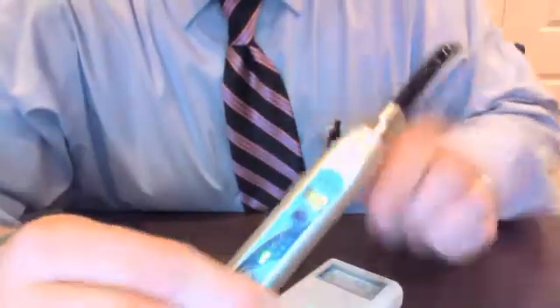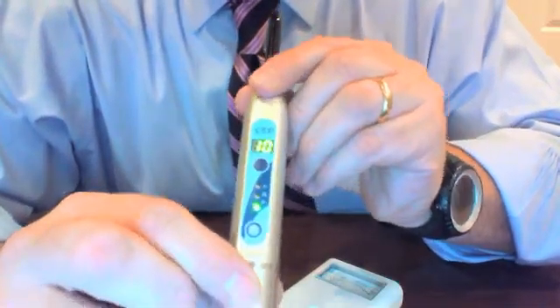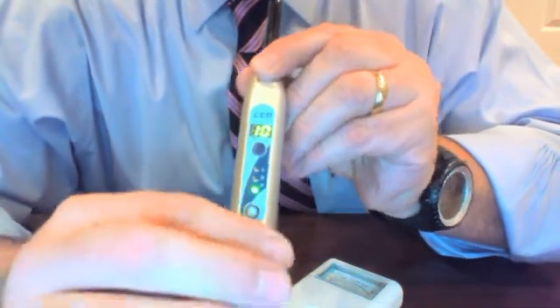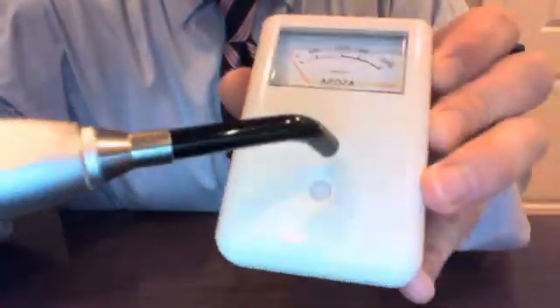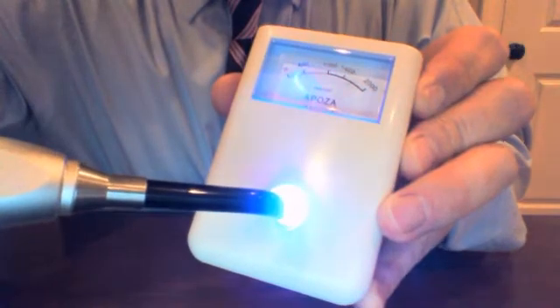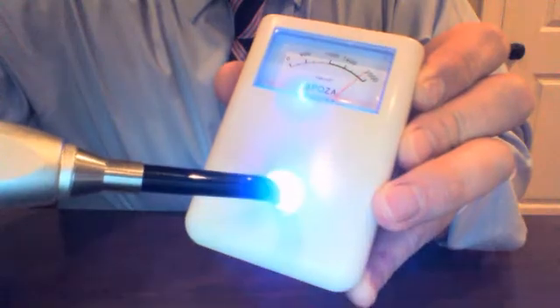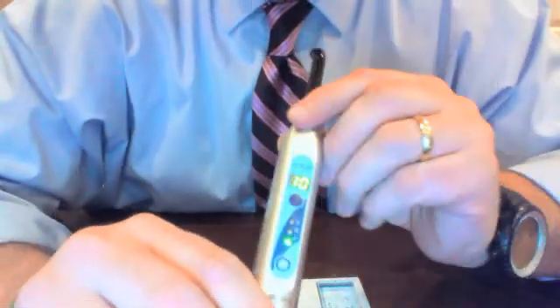The pulsated mode is available in three different intervals: 10, 20, and 30 seconds. For this demonstration, let's stick with 10 seconds and use the radiometer. You can see it toggling back and forth — strong — it beeped at five seconds, and we're done. It's toggling back and forth, allowing you to give an even cure across the composite.